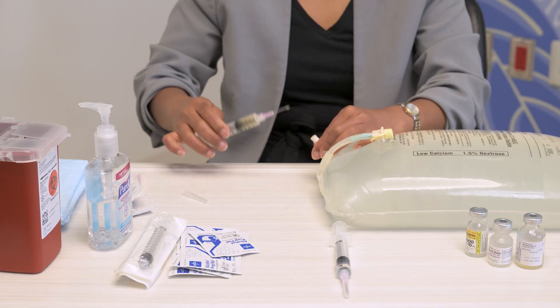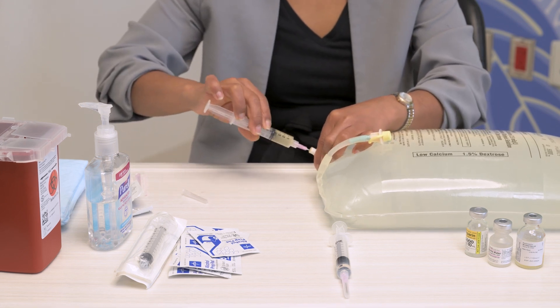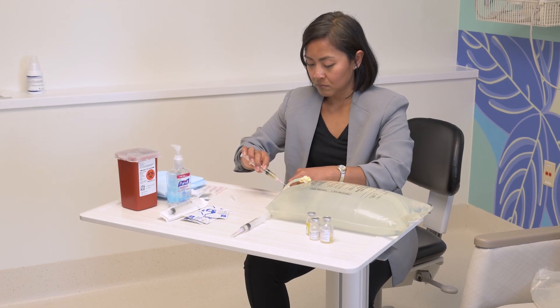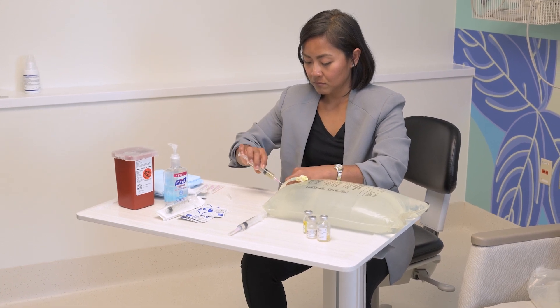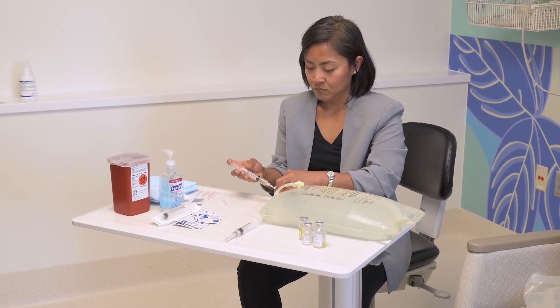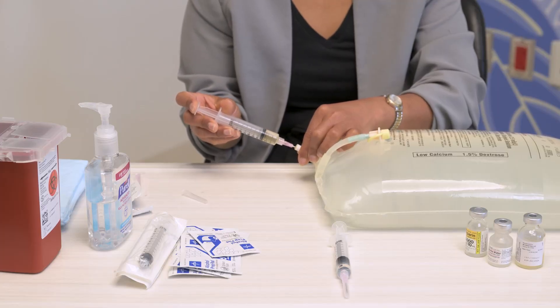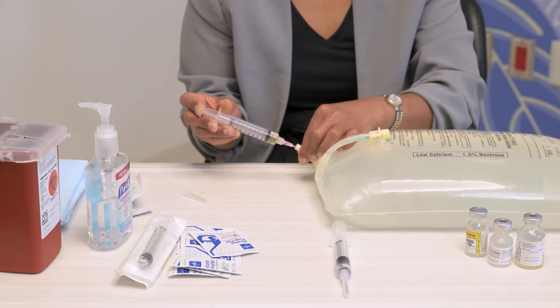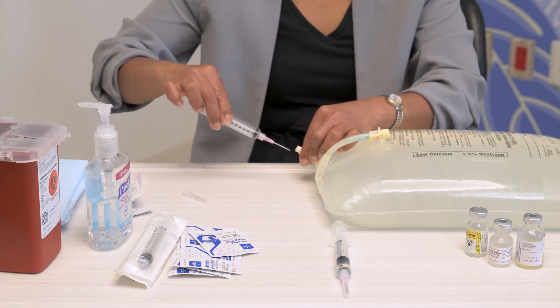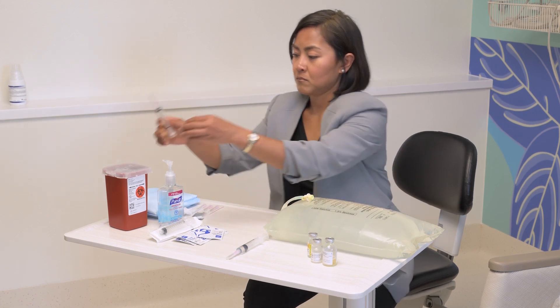Insert the needle of the syringe into the medicine port at the inner circle. If it feels hard to push the needle in, pull back and gently try again. Be sure not to push the needle through the side of the medicine port. Once the needle is in place, push on the syringe plunger to add the antibiotic to the bag. Remove the needle from the bag and throw the whole syringe in the appropriate sharps container.